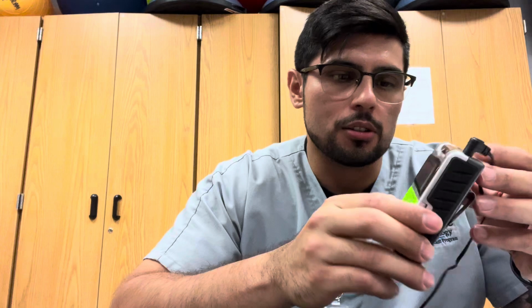I'm a student physical therapist assistant here at IoT, and today we're going to be going over TENS. So TENS is used for more gate control theory, so to reduce pain. And then we'll go over some parameters as well.